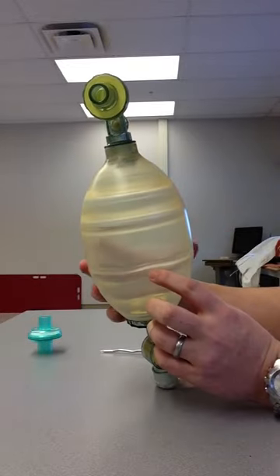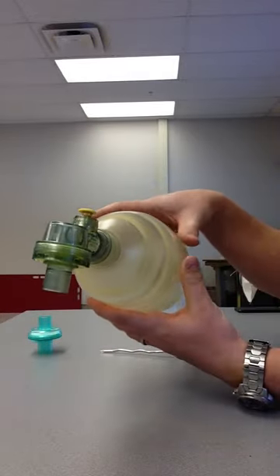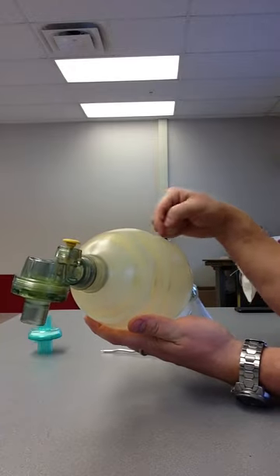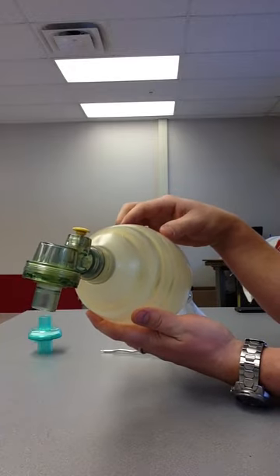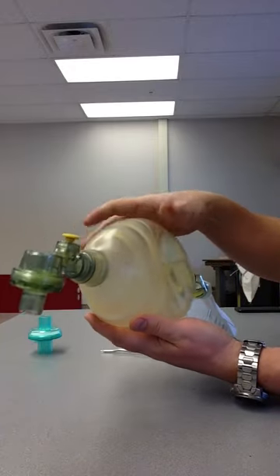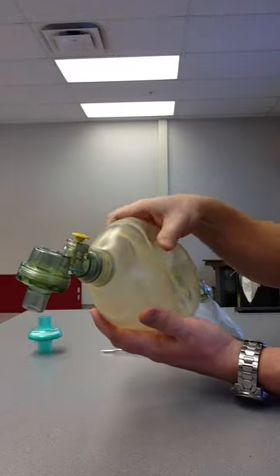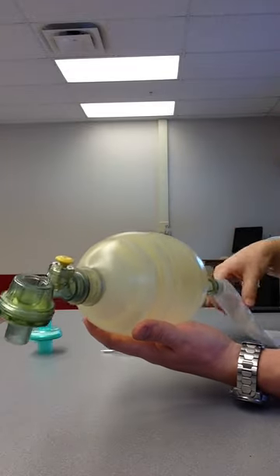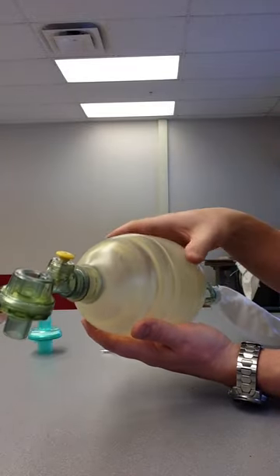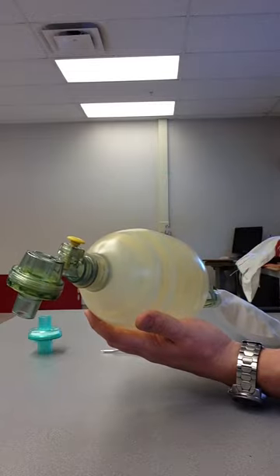Okay, a couple different checks for the BVM here. First, simple check: squeeze it, see if it self-inflates. The self-inflation will tell you that those valves are properly working. So when you squeeze it, that compressible body should self-inflate, regardless if there's an oxygen source or not. That's one of the features of a self-inflating bag.